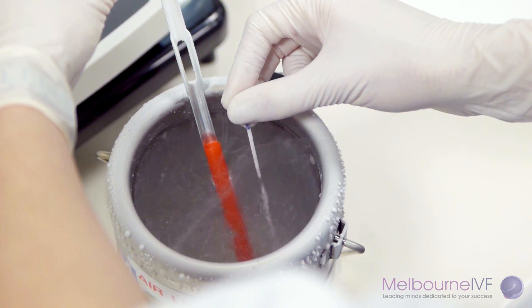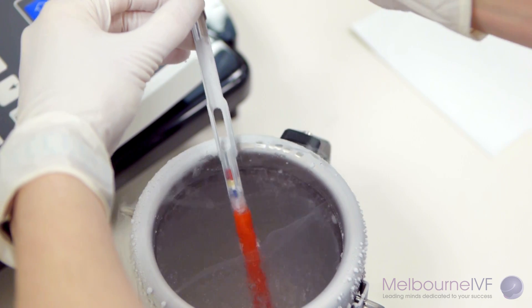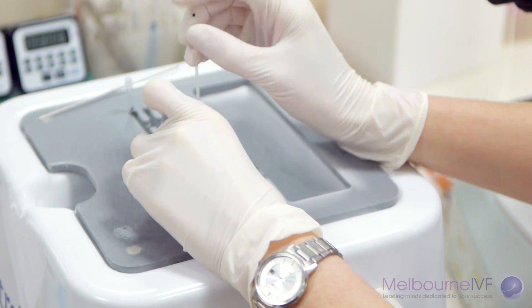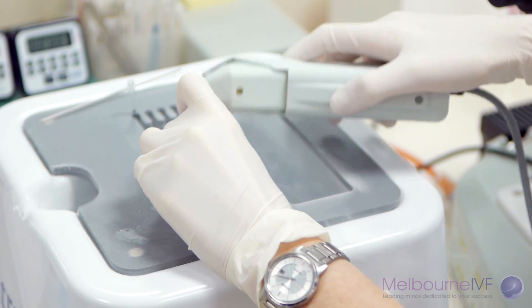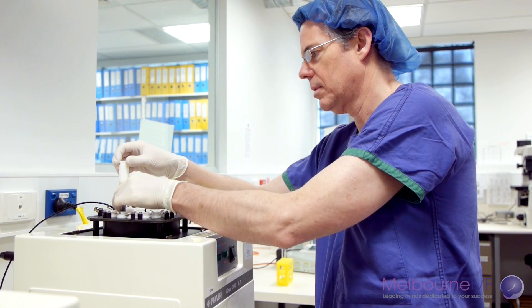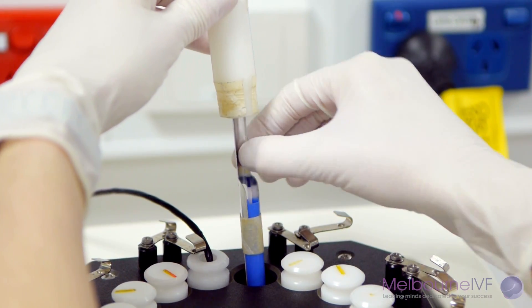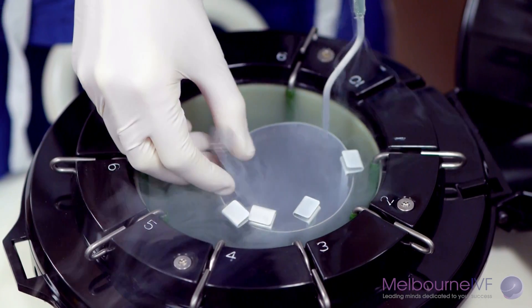Embryo cryopreservation. Any additional good-quality embryos can be frozen or cryopreserved and used in future transfer cycles, known as a thaw cycle. The techniques used at Melbourne IVF are to immerse the embryos in a series of special fluid solutions to protect their cellular structure. They are then placed into storage containers which are cooled either slowly over a few hours — slow freezing — or rapidly — vitrification — depending on the treatment type. The embryos are then placed into tanks of liquid nitrogen for longer-term storage.